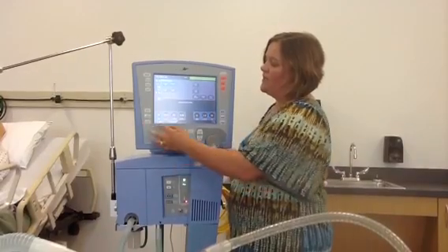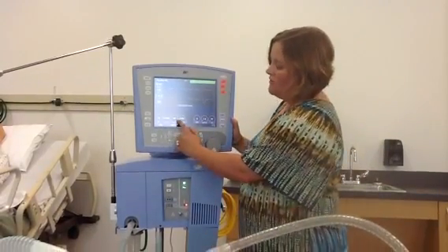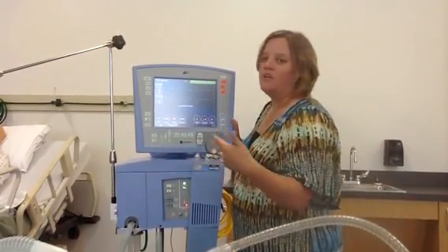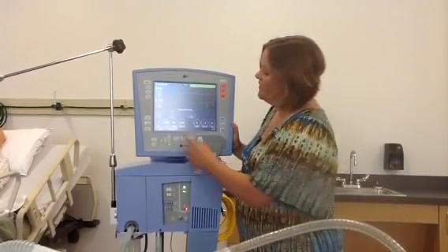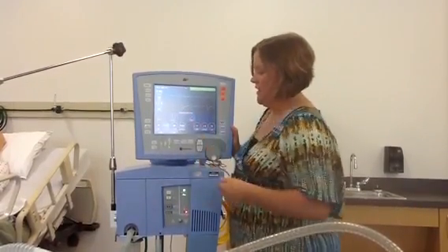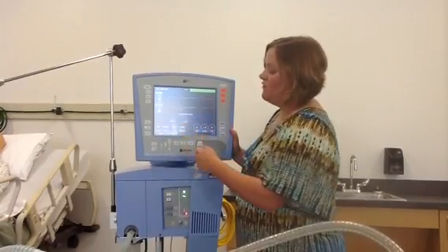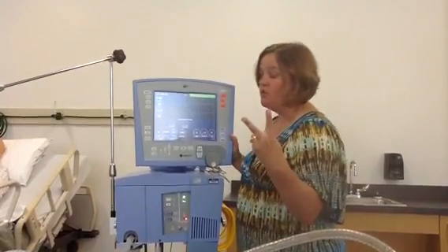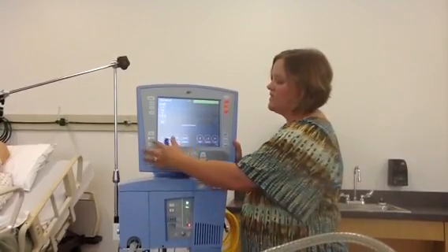This next button is called advanced settings. If you look down on any one of these areas, there's a little yellow triangle, and that means there is an advanced setting for that parameter. When the advanced setting light is on and you see the blue box with advanced settings, hitting that button will tell you what the advanced setting is. For this one, it is v-sync, giving the patient the ability to be more synchronous with the ventilator. The peak flow has demand flow on and off, and can change your square to a decelerating waveform — so two flow waveforms on this ventilator.